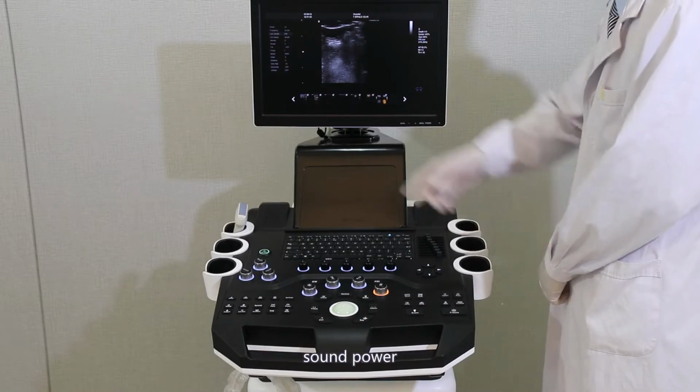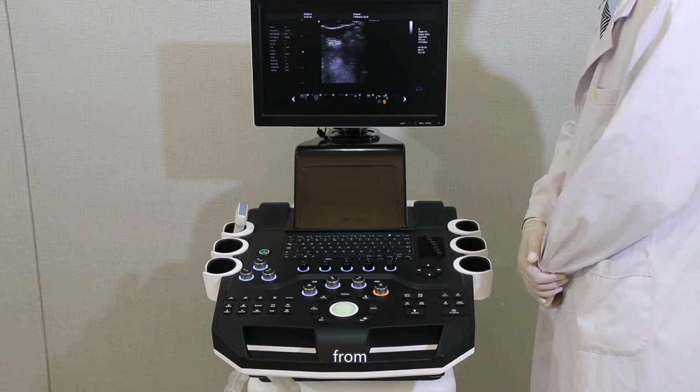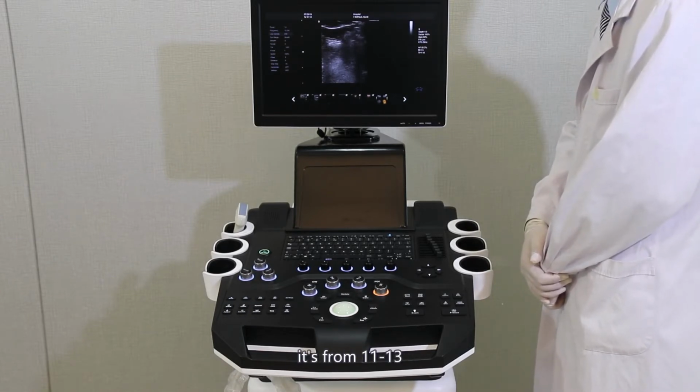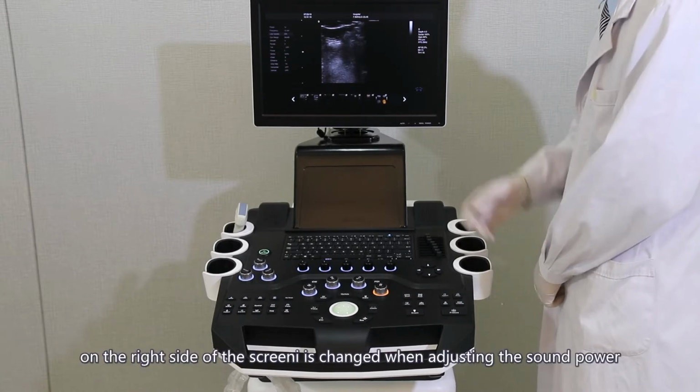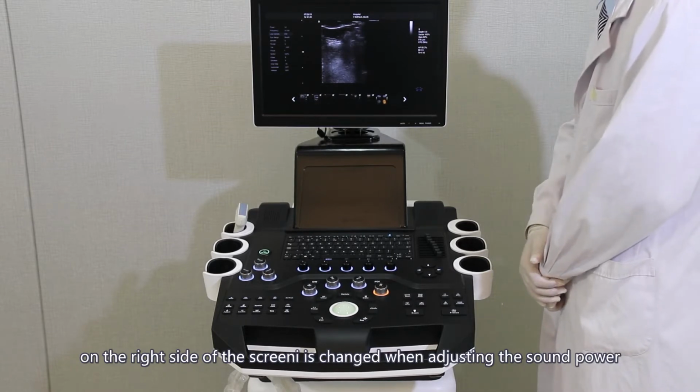Sound power. Adjustment range is from 0 to 15. The advised value is from 11 to 13. The biological index on the right side of the screen changes when adjusting the sound power.